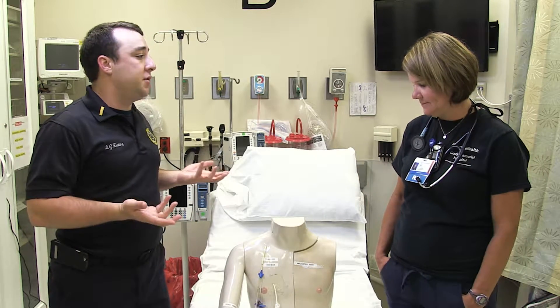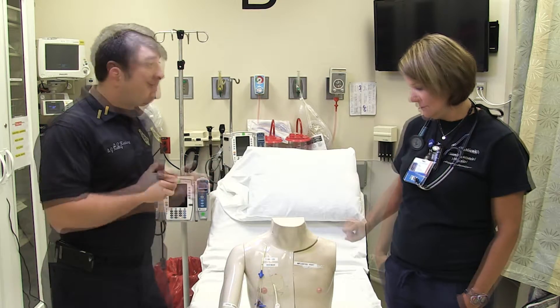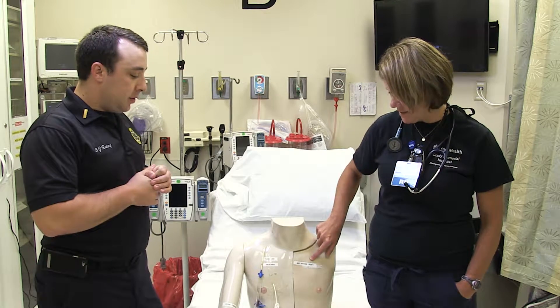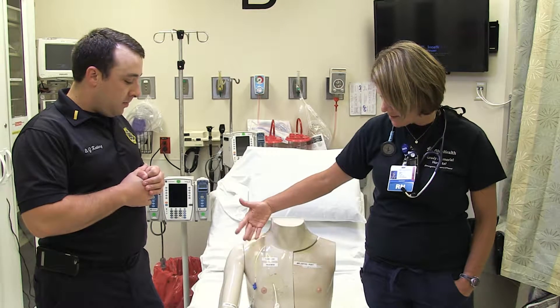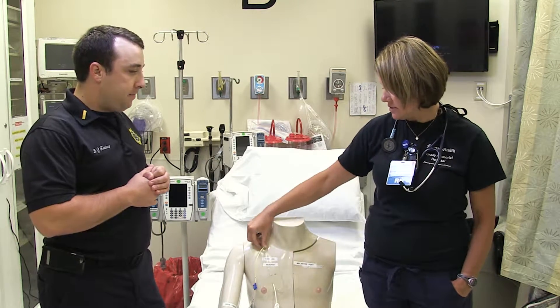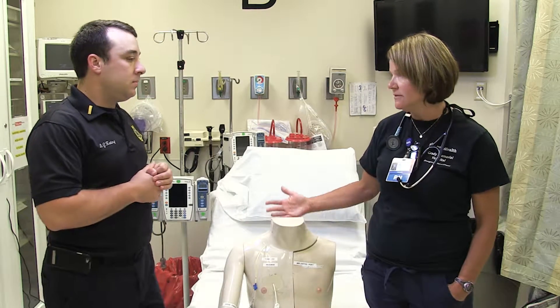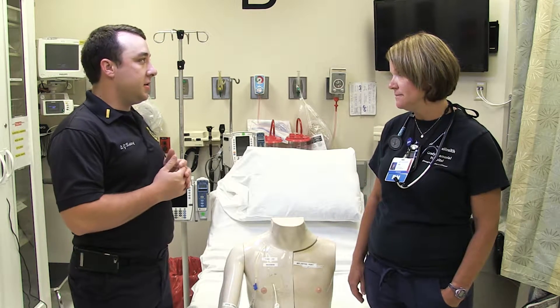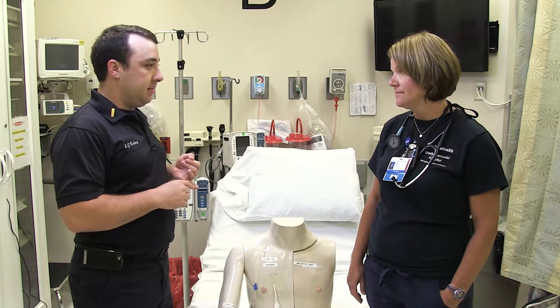Let's talk about the preparation work involved with accessing one of these central catheters. These are different kinds, but what we're going to talk about is the implanted port. Each of these are central lines, and a central line is just what it sounds like — it is central circulation, going directly into the heart. It just goes to show the importance of sterile technique and the risk involved. There's a high incidence, if not done right, of infection, of embolism, things like that.